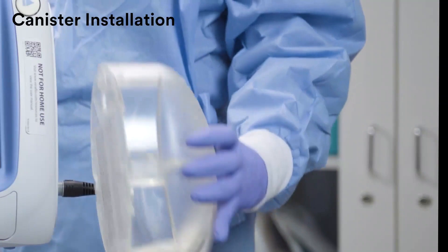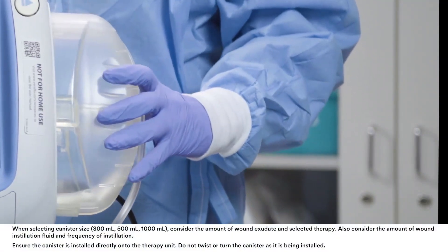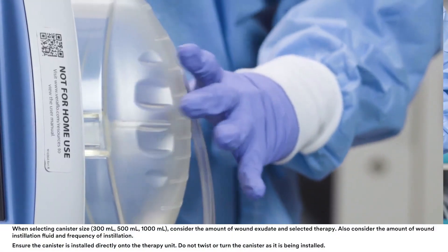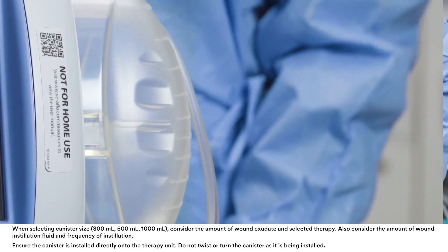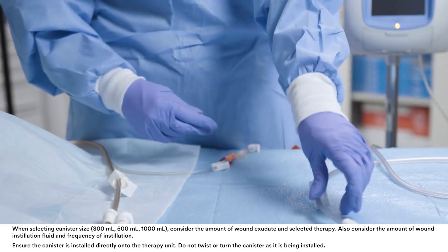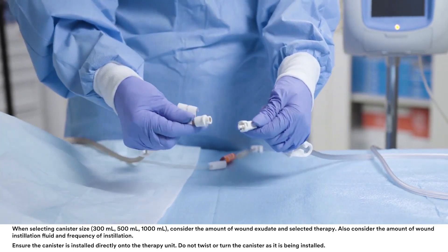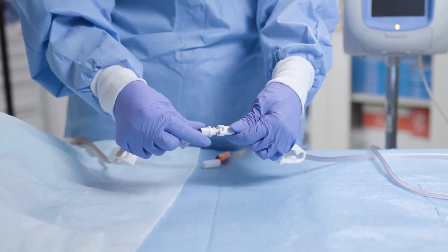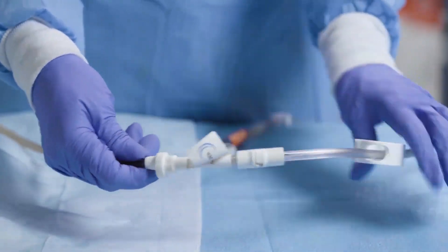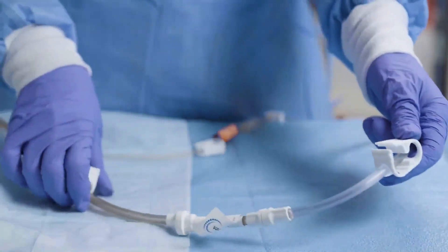To install the canister, first slide the canister into the side of the unit and push it firmly into place. An audible click indicates the canister is fully seated. Connect the canister tubing to the dressing tubing by pushing the connectors together. Finally, twist the connectors until the locking tabs are fully engaged and open all tubing clamps.